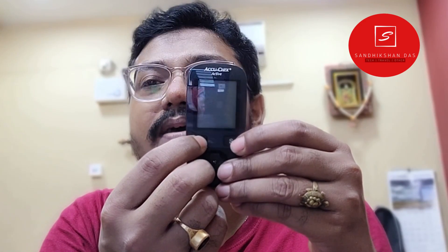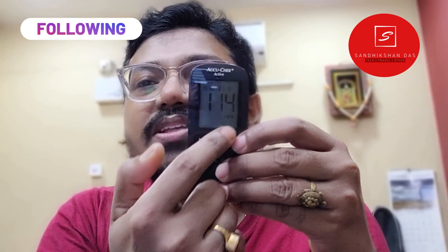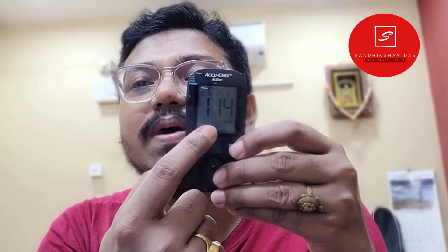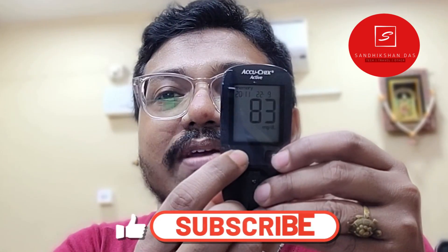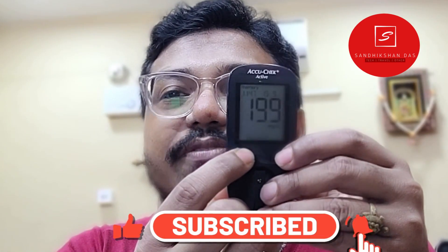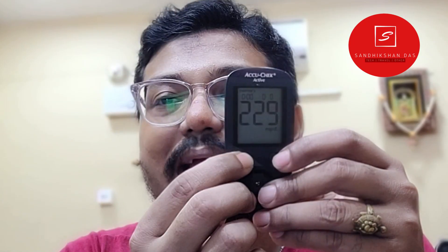Let's start. You can see the readings have already appeared — this is the last result which you performed. You will then have to press the M button again and it will go to the second result. If you press again, it will keep going to the next result. You will have to keep pressing it single times to move through each result.